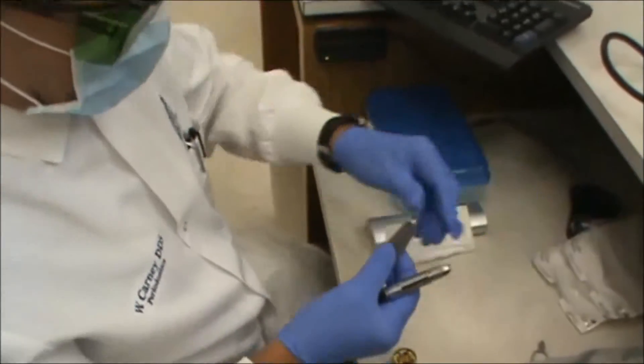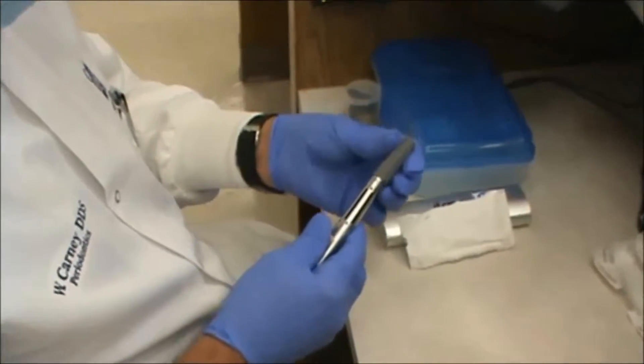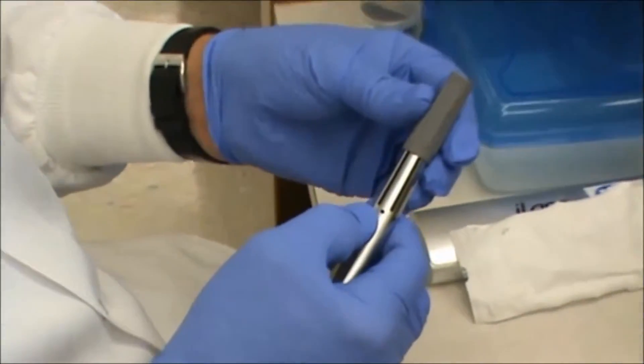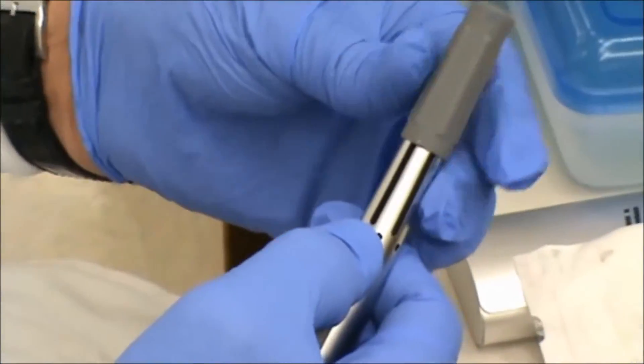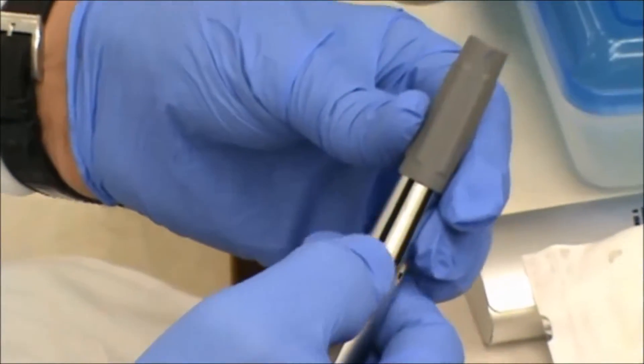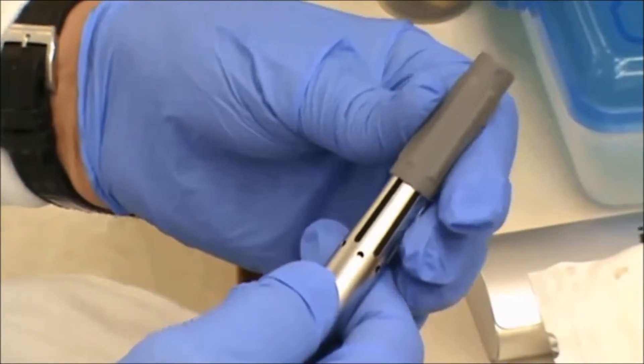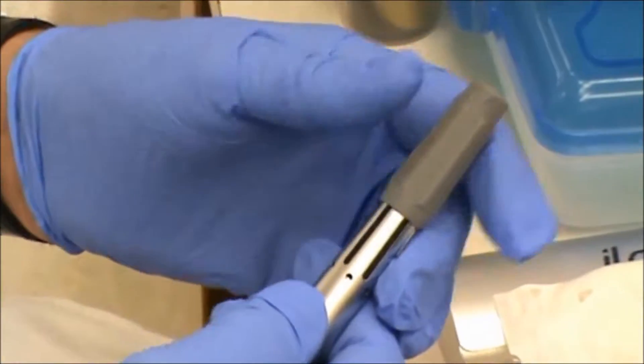The shroud then covers the handle and these little ribs turn the laser on. So we want to have the ribs aligned on them.